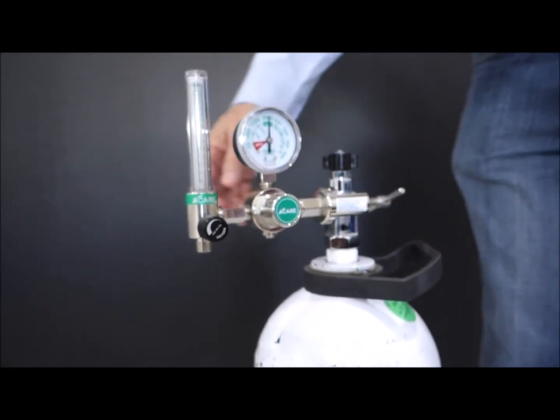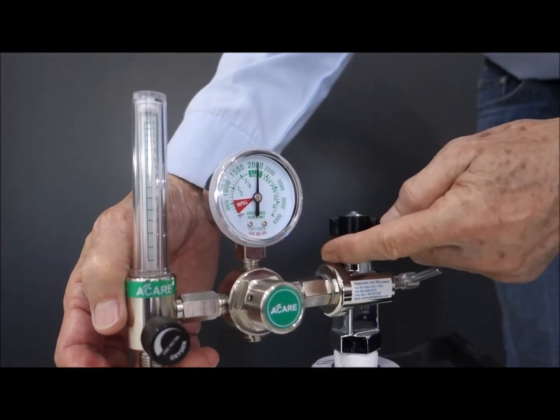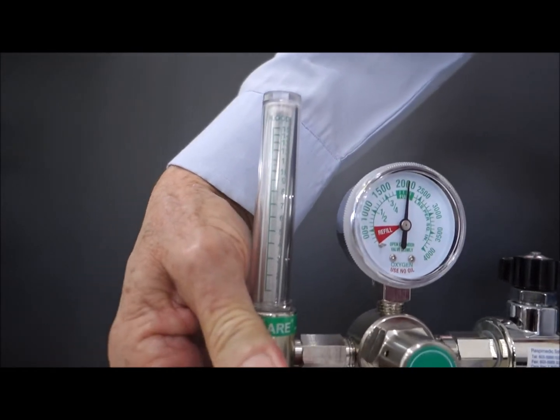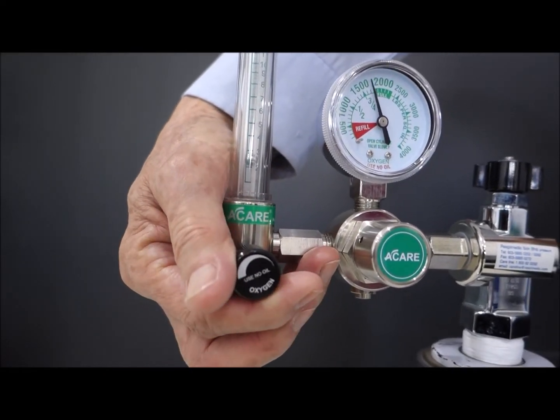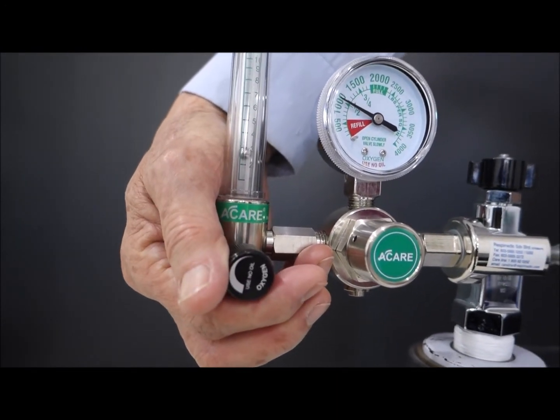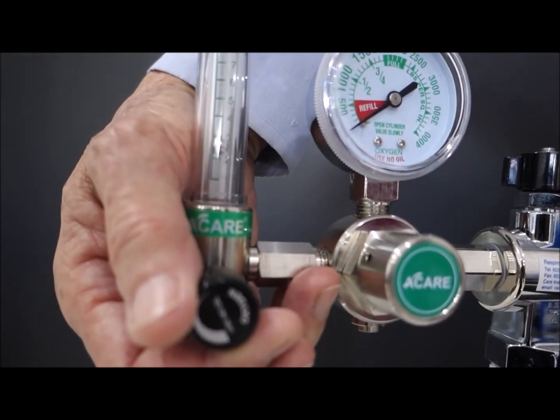And the next best thing, if you're not going to use it for long, remember you see, there's a lot of residual pressure in the system. So it's best also to release off the residual pressure, so that for safety, as well as to ensure that the regulator and the whole system here will last many many years.